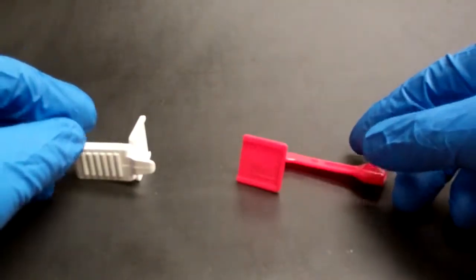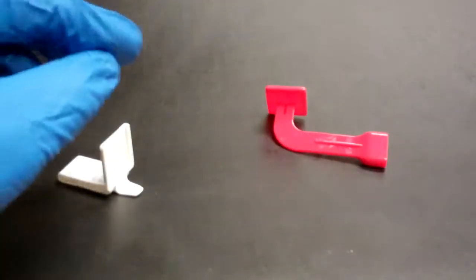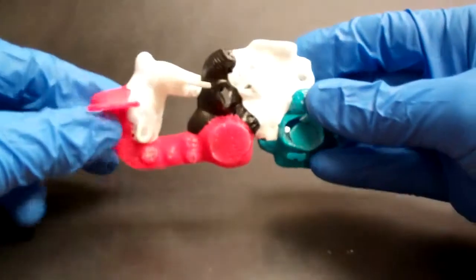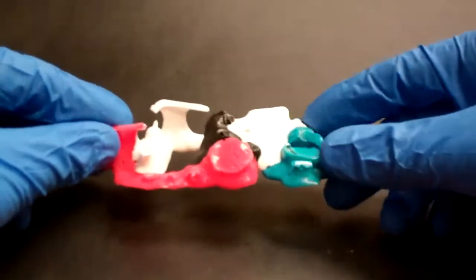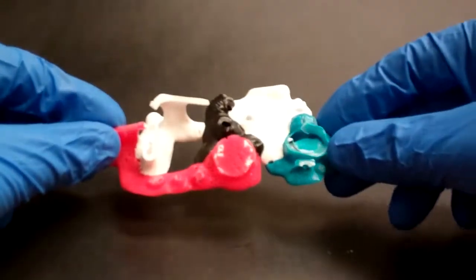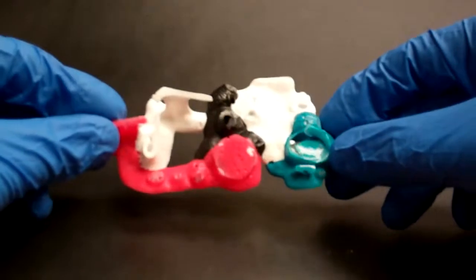Again, this is the RIN XCP QT system. It's disposable and you want to make sure when you have used it that you go ahead and pitch it. You don't want to try and autoclave it. It's a low temp melt plastic. It will melt in the autoclave and end up looking like this. So you don't want that to happen.